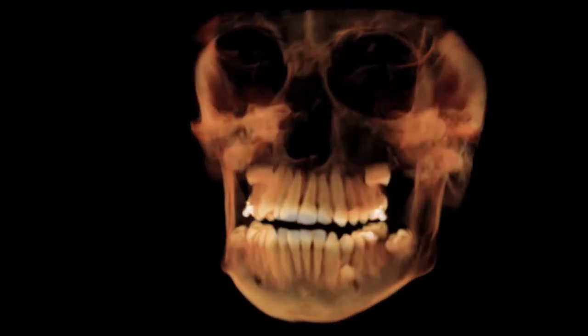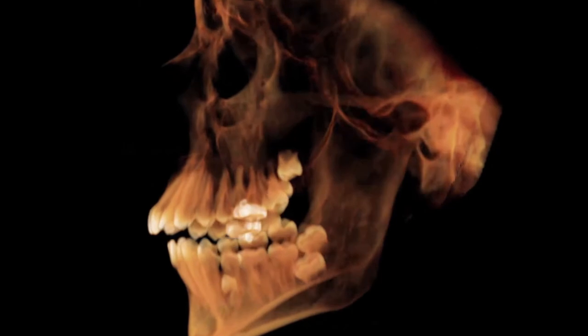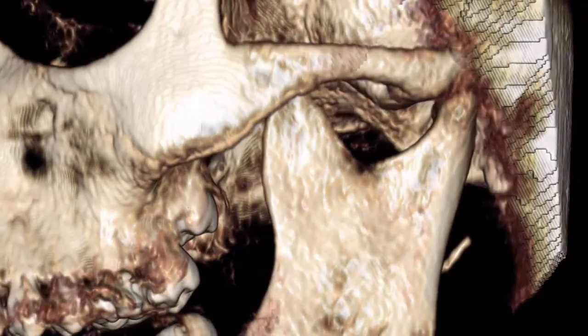The 15 cm field of view can generate a full 3D panoramic view of the patient from the mandible to the crest of the orbital bone — the largest field of view, allowing for double TMJ analysis.